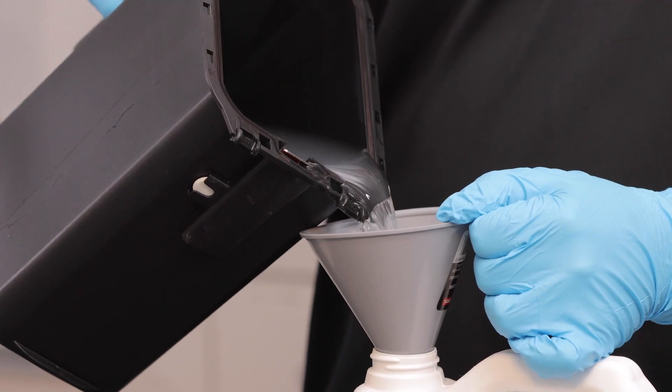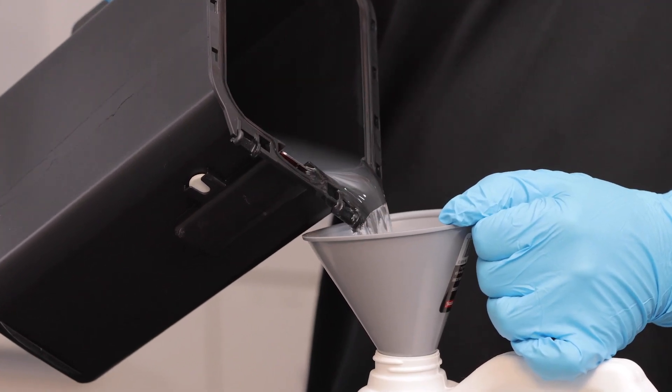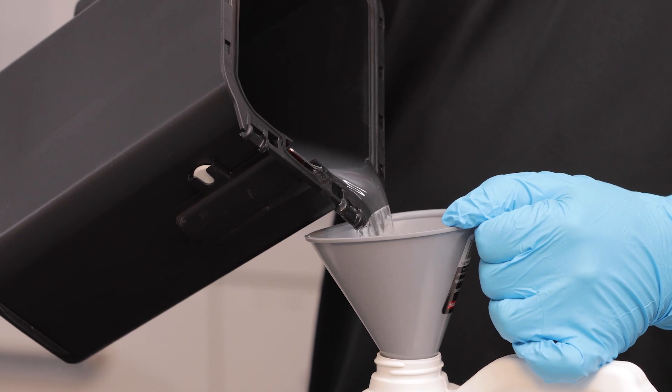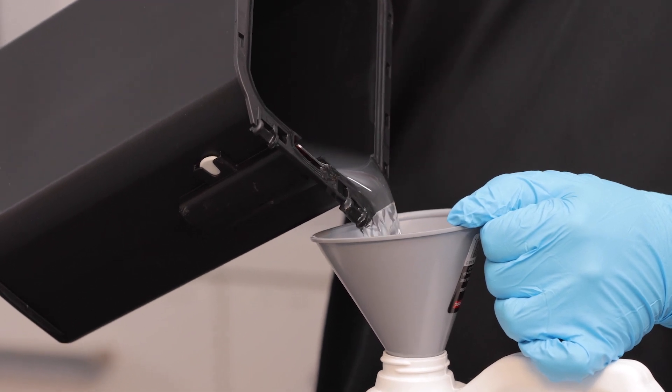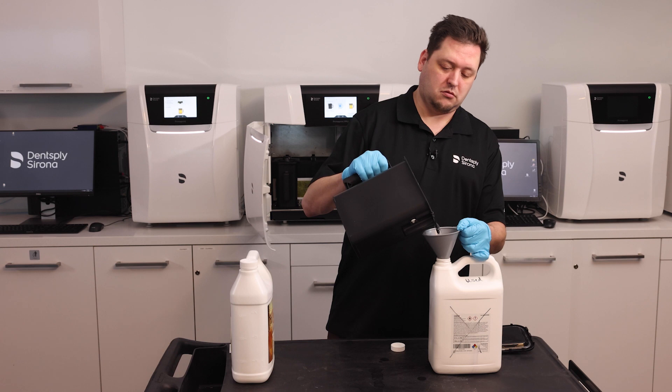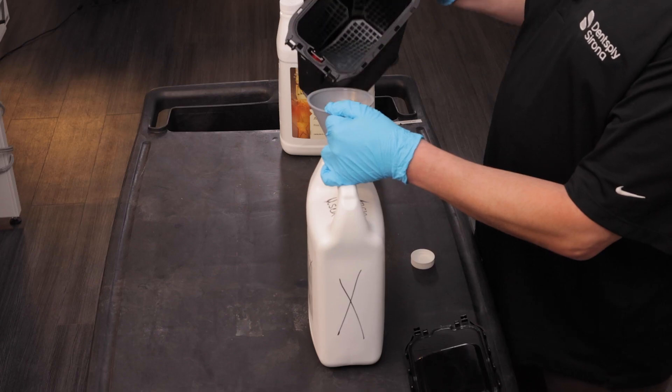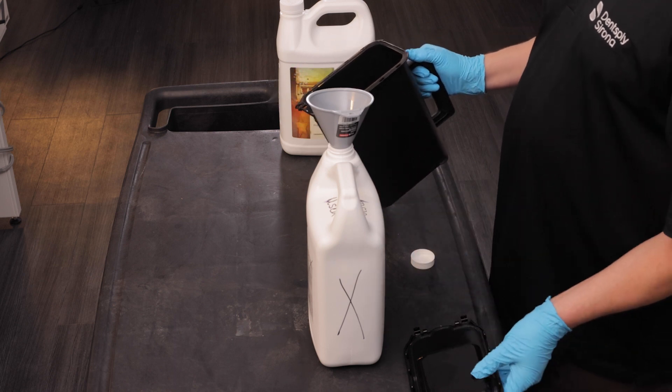I'm not going to pour all of it, just most of it. As I said, I left some alcohol in the container.